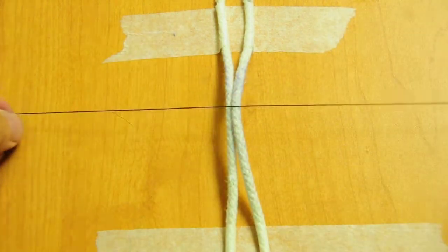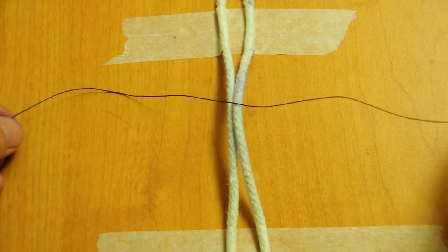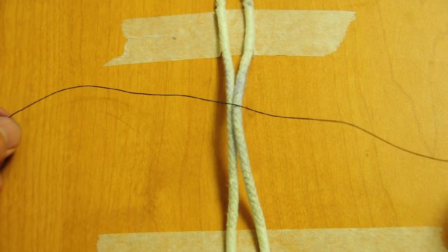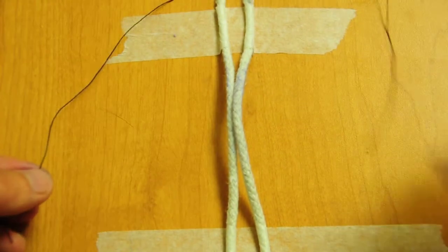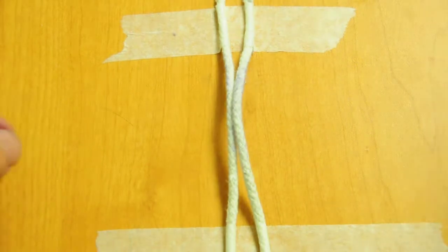Okay, so now we're going to do a video with actual suture. This is O-Silk. It's a good practice suture. They already come with the needles off.